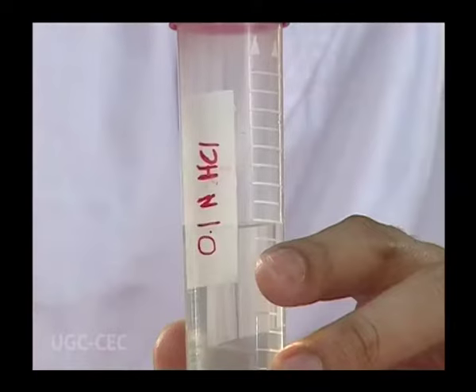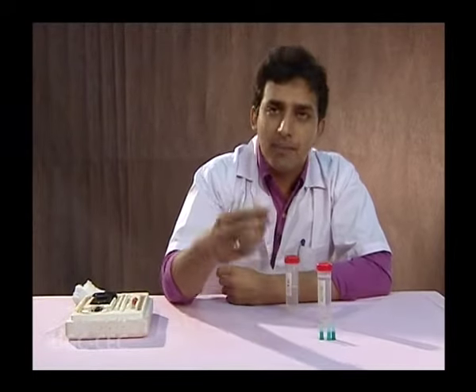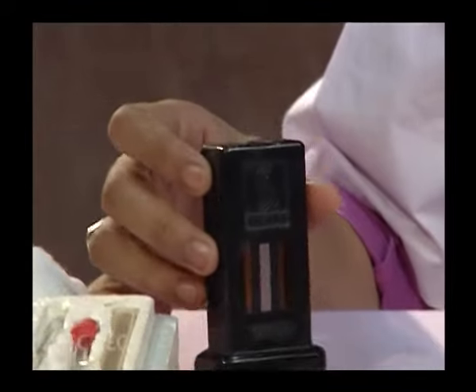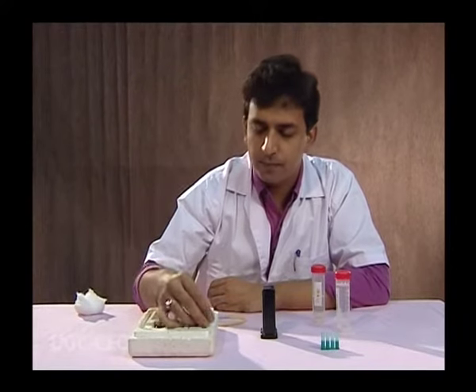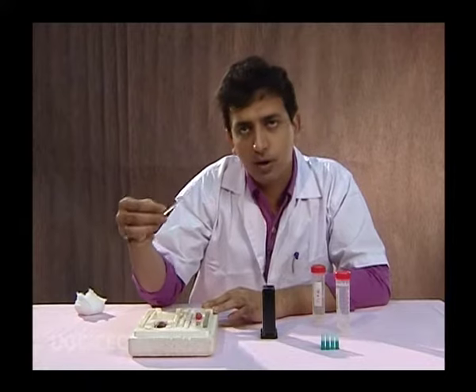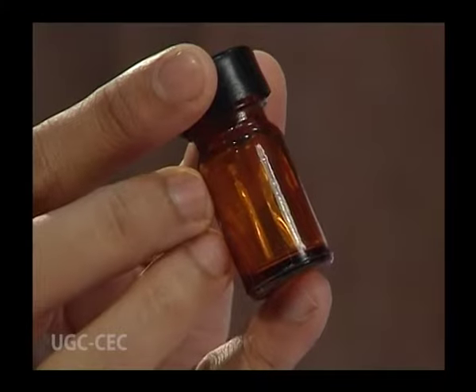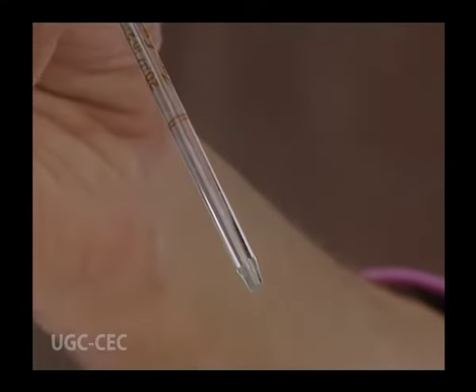For this experiment, we are going to need 0.1 N HCl, alcohol as a disinfecting agent, pricking needles for pricking the finger, and a hemoglobinometer. The hemoglobinometer consists of a comparator box, a special graduated diluting tube, a dropper for adding water, and a small glass rod for stirring the solution. We also need a brown bottle for storing the 0.1 N HCl and a pipette for collecting the blood drop.